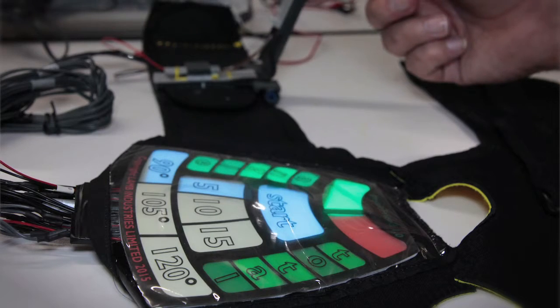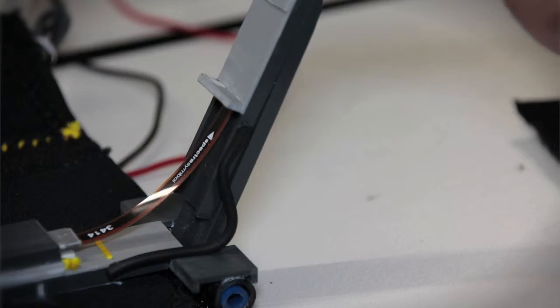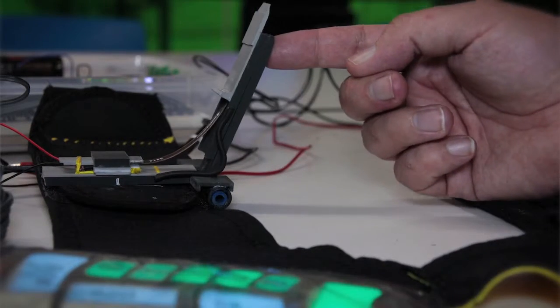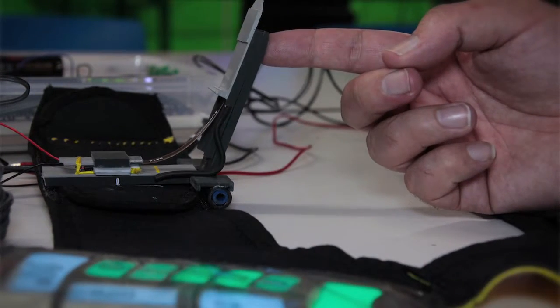You set the number of repetitions you need to do, you set the angle you need to exercise to and it pretty much does the rest. It gives you very visual feedback on the upper knee area which is a kind of natural dashboard for you. It allows you to confidently do your exercises and hopefully recover better.